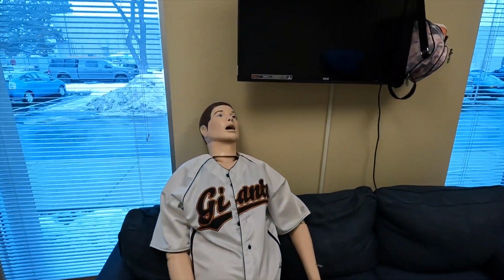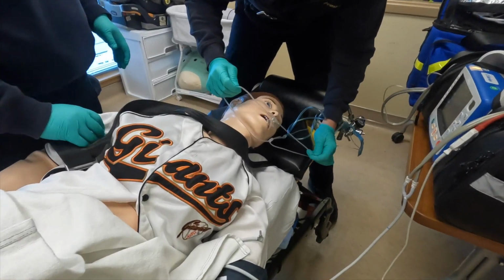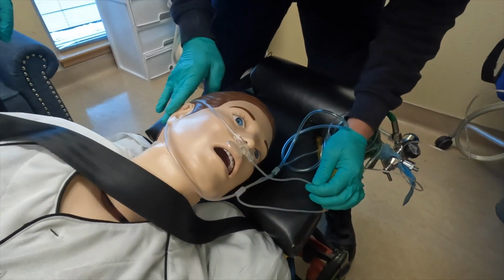Your general impression may start with any combination of sounds, such as shortness of breath, moaning, vomiting, or other. As you start to assess the ABCDs, note any issues with the airway to include potential airway swelling, or maybe cyanosis as indicated by blue lights inside the mouth. As always, we want airway patency and protection, so please manage accordingly.